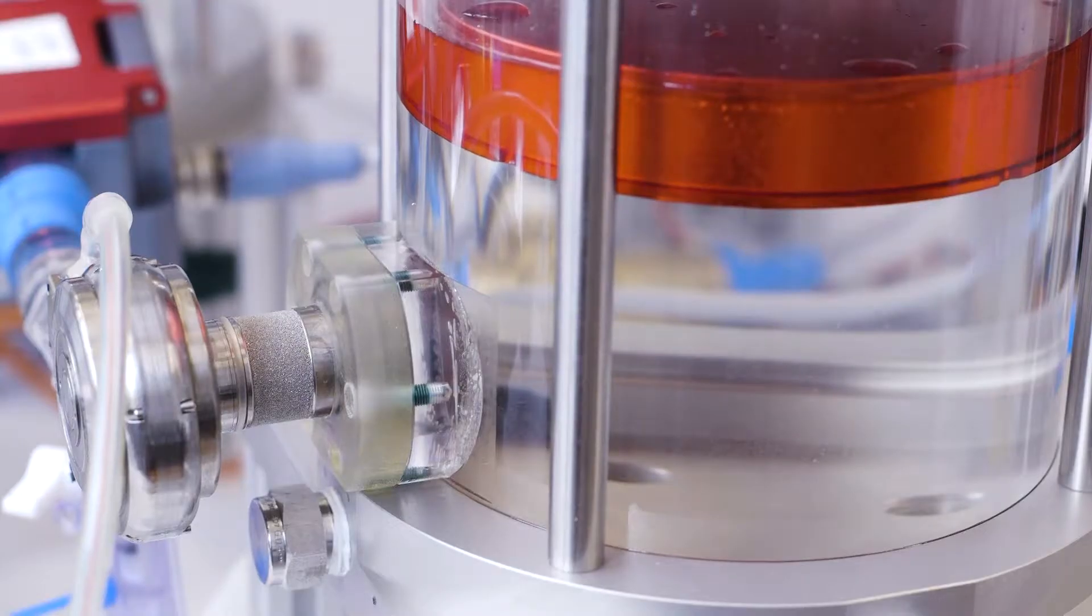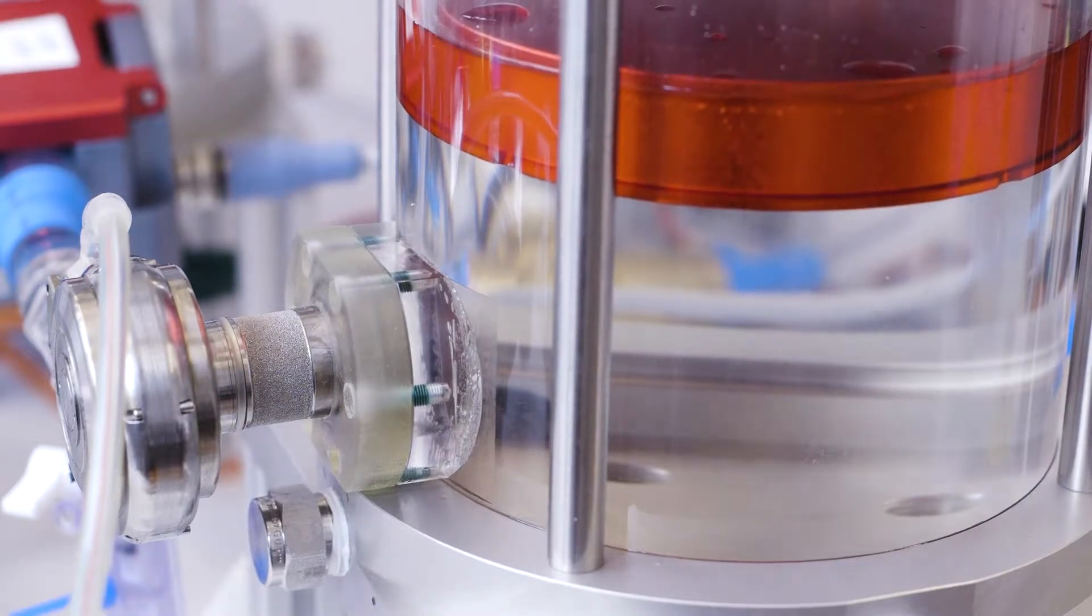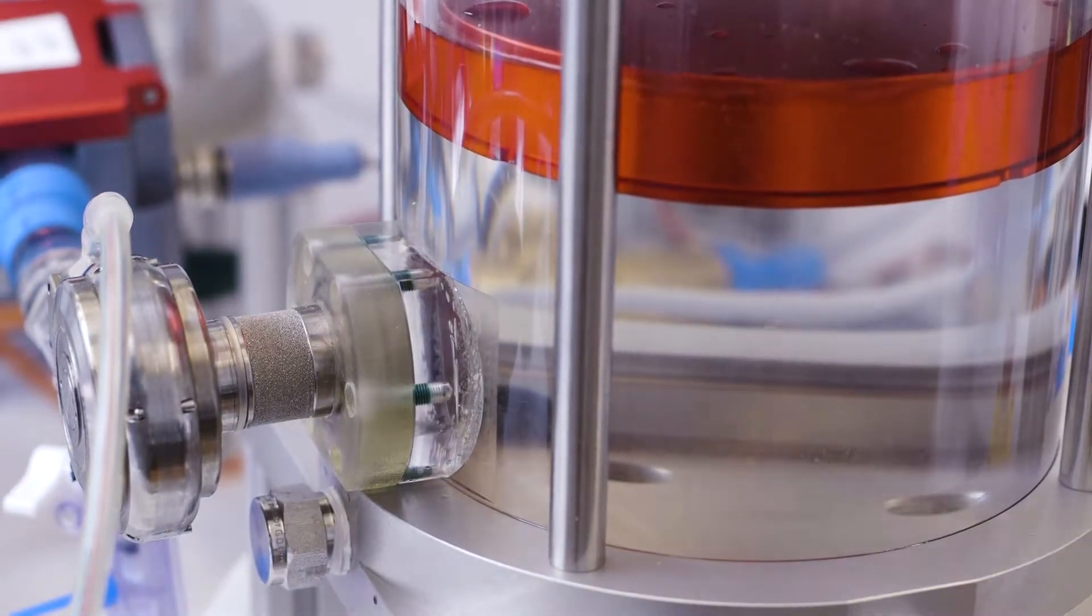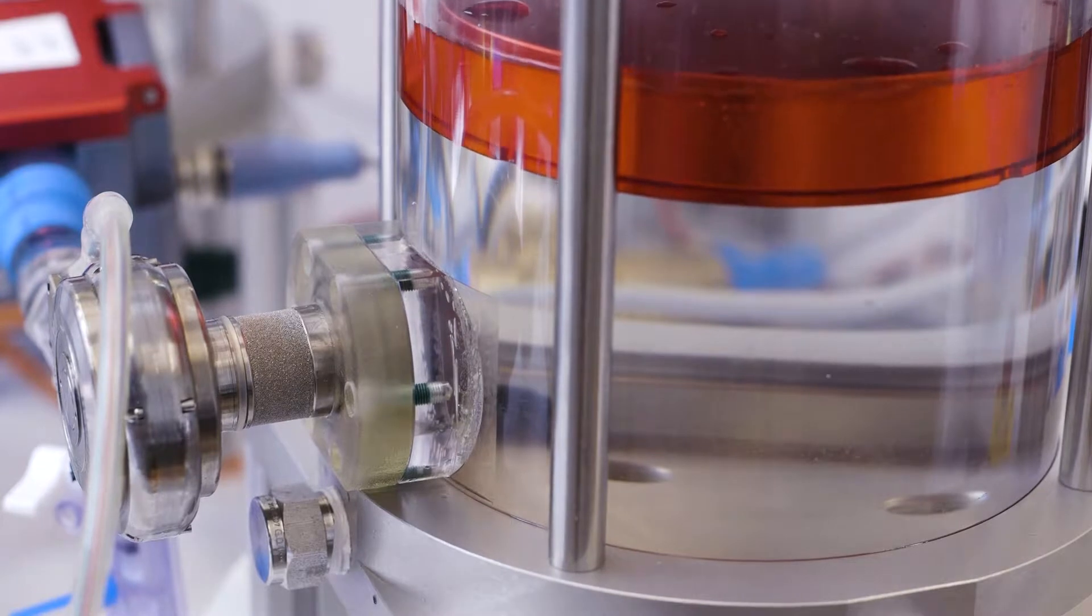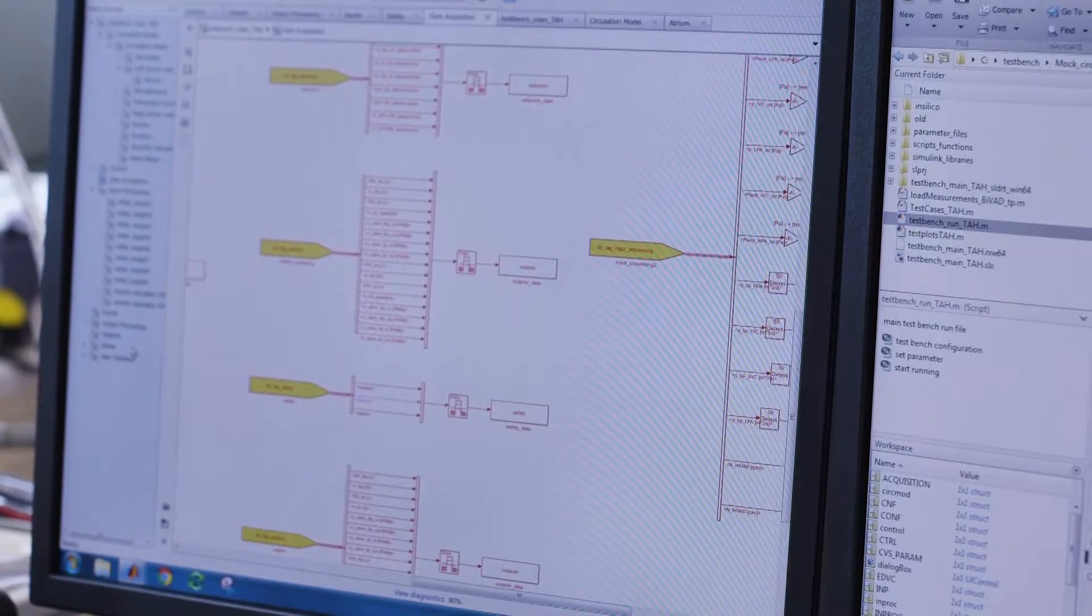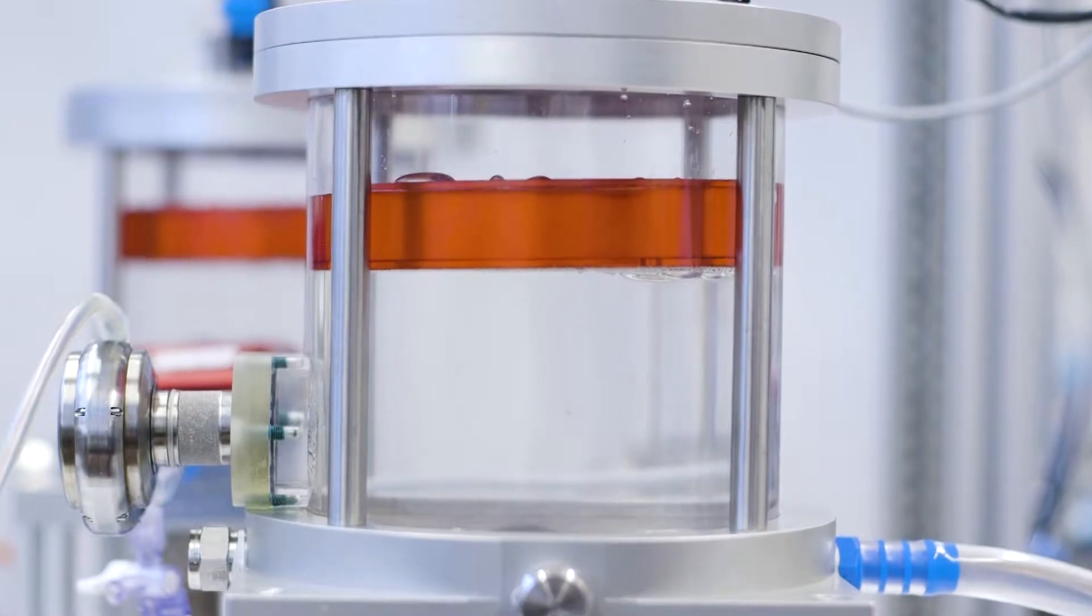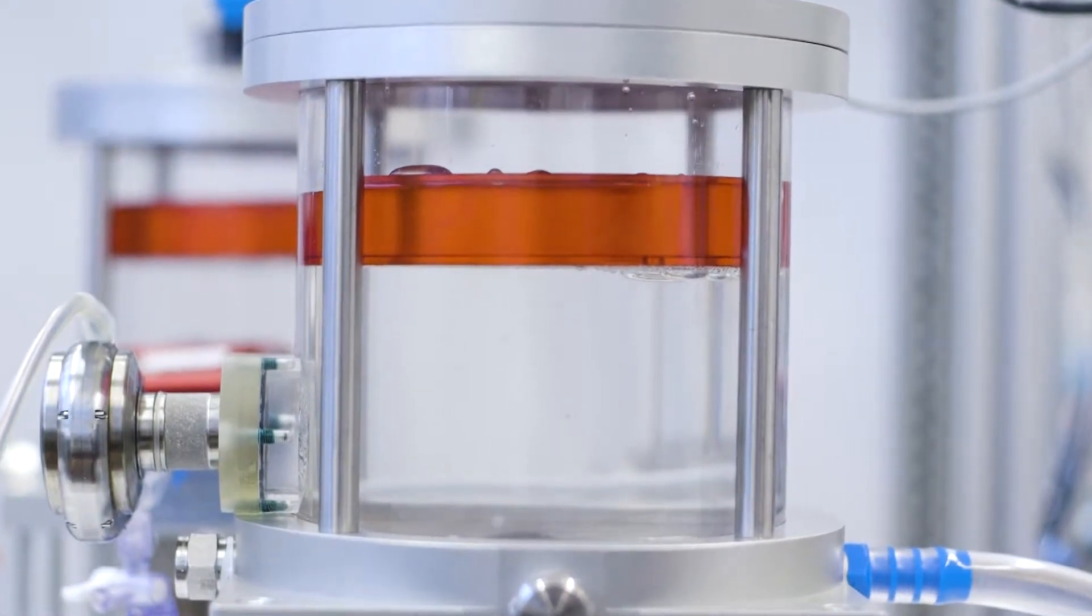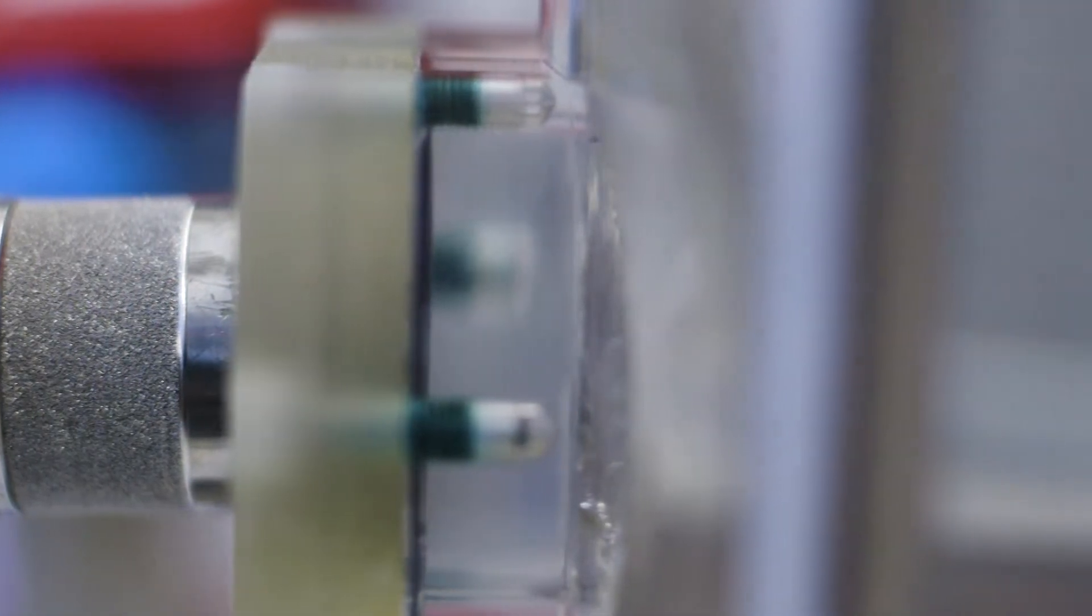Our versatile hybrid mock circulation is based on the hardware in the loop concept. It is divided into a hardware part and a numerical model. The implant is connected to the hydraulic interface and interacts in real time with the mimicked cardiovascular system.